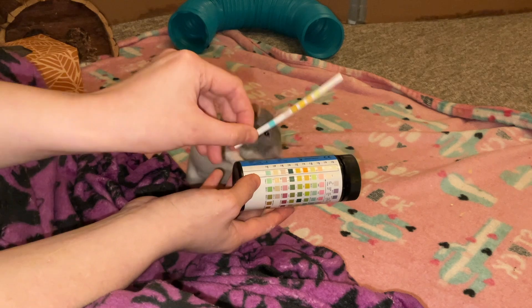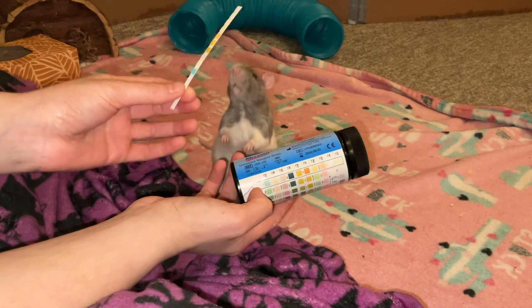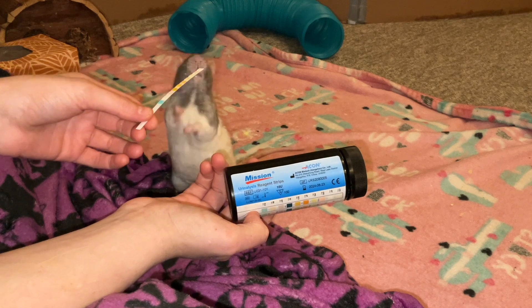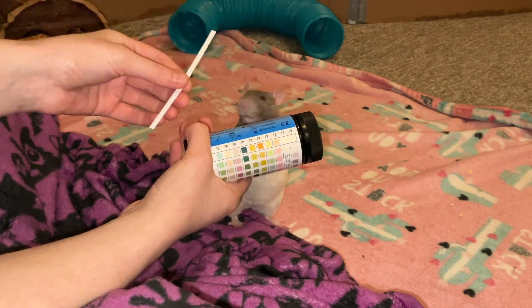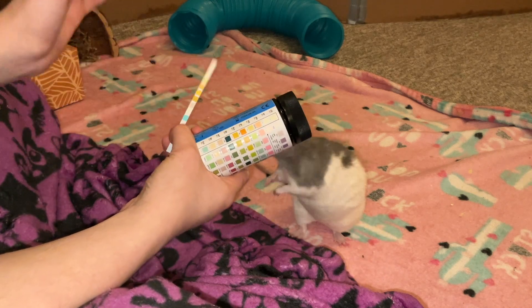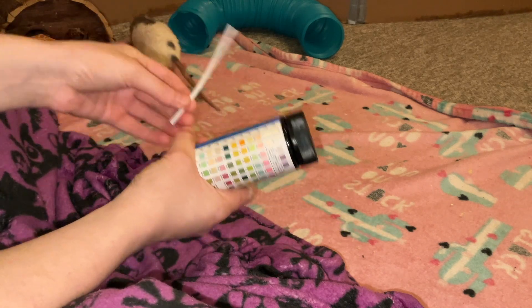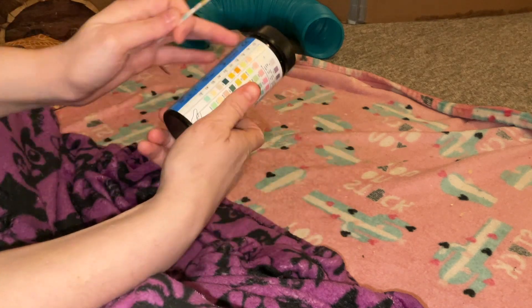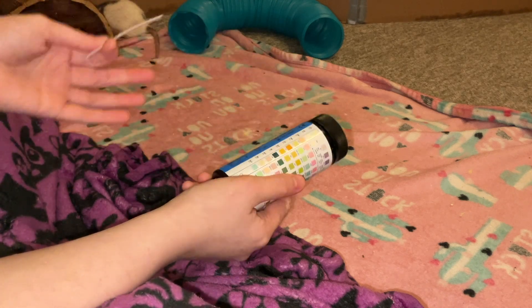This is what the strip looks like in its base form before it's been through urine. To use these, you need your rat's urine uncontaminated — meaning no poop, no running through it, no marking, nothing like that. Then you just put the strip in there, dip it in and rub it around for a few seconds, and then wait between 60 to 90 seconds depending on what you're looking at. For the three metrics I mentioned, you need to wait 60 seconds.